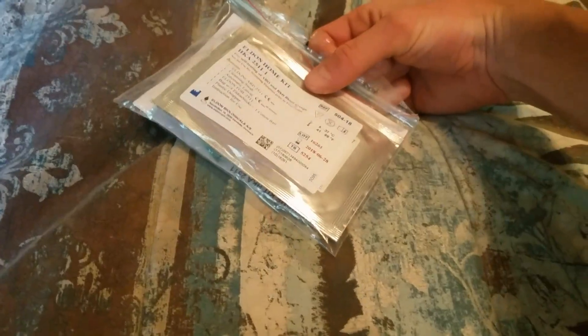So this is the test kit. It was $8.65 and then I had to pay shipping and handling, so that can vary. It could be a little bit or a lot depending on where you live and what company you're ordering from. For me, this came to about $16 all total.